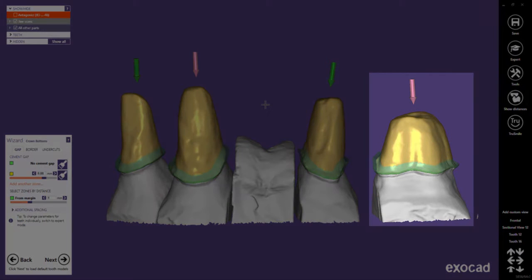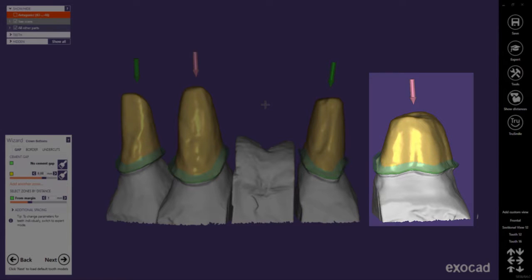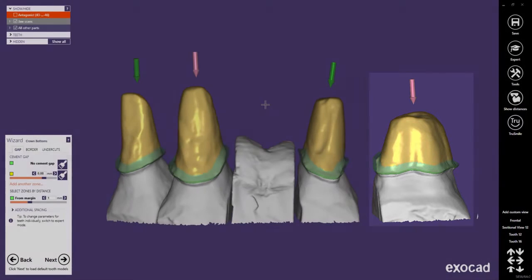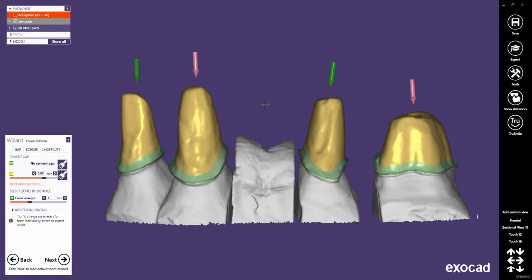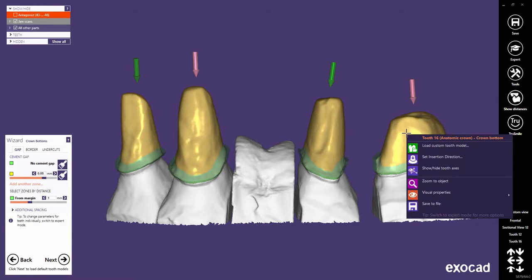A red arrow indicates that the insertion axis for this tooth might not be optimally defined and may need your attention. With a right mouse click on the tooth, you can always verify or change it.